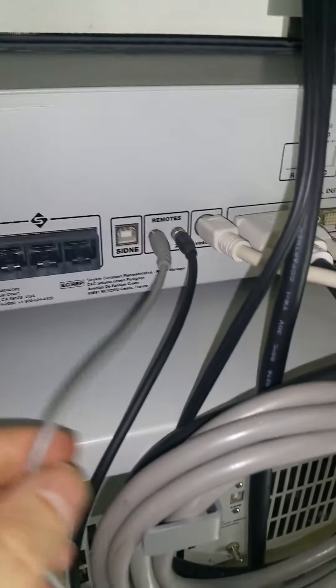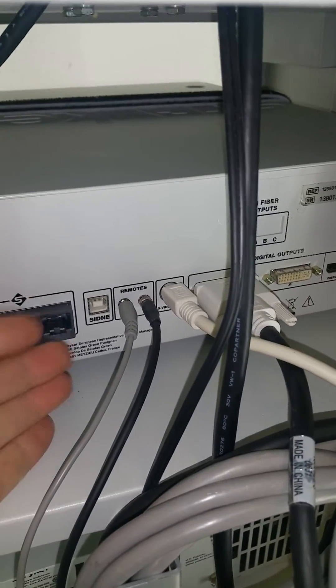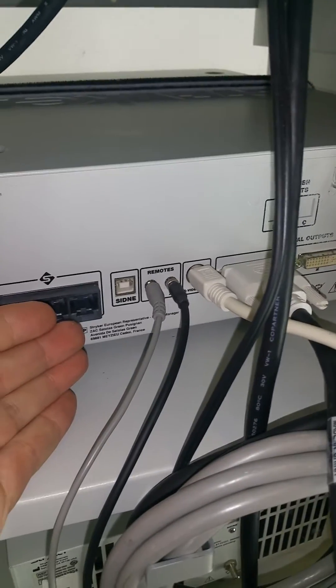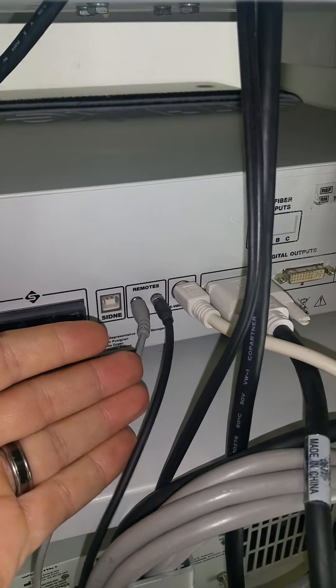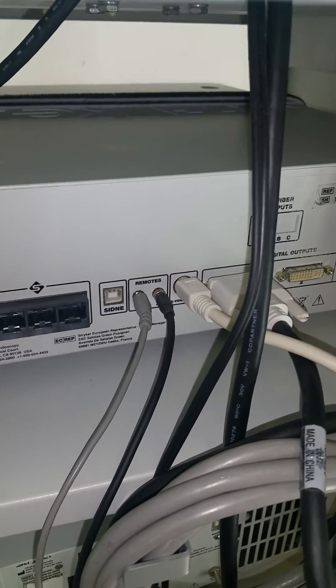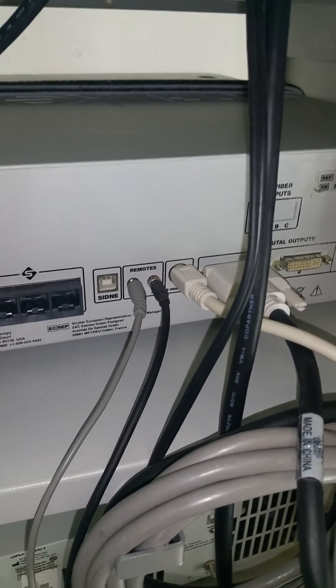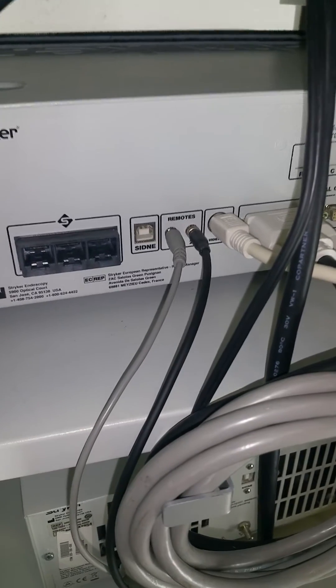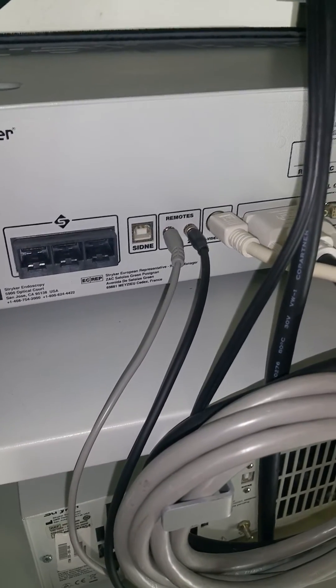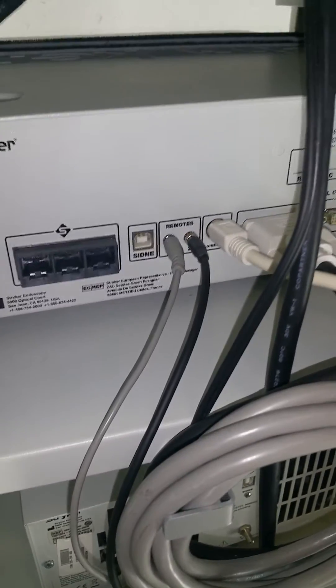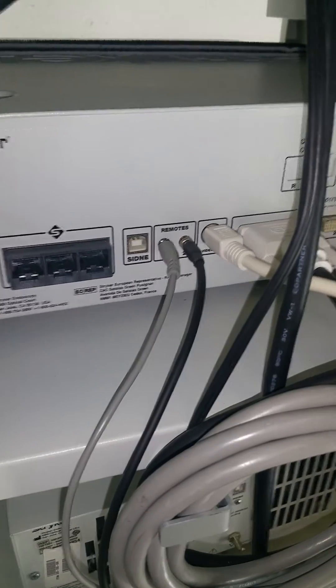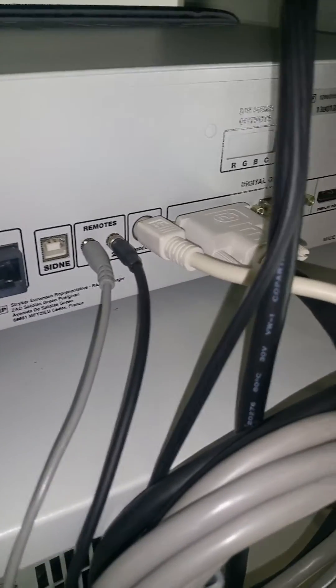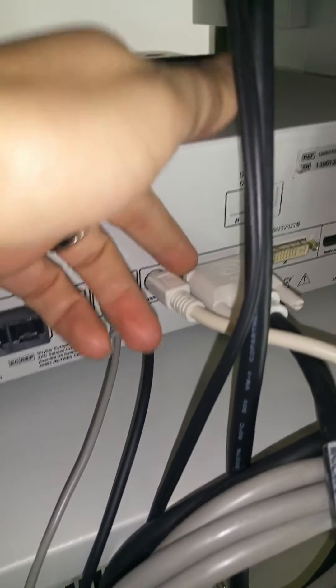Now they're indicated with a one and a two, the one being photos, the two being video. I will explain once I get down to the SDC what's important about these and making sure that you get the one in the one spot and the two in the two spot. But I'm going to move on to this next.